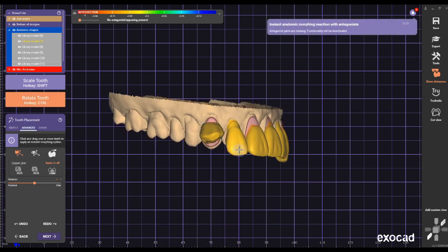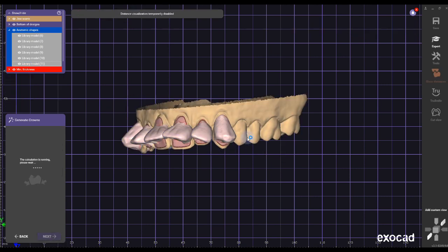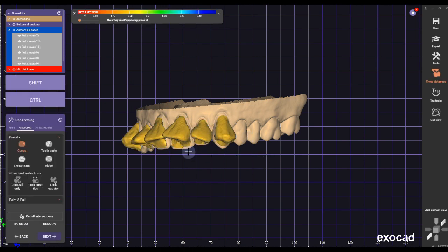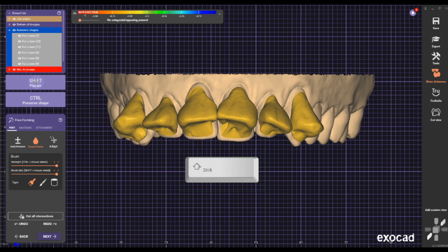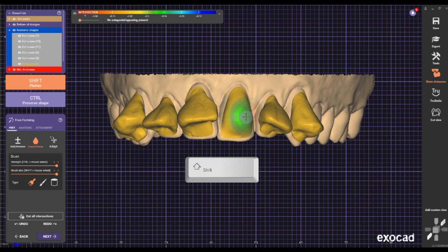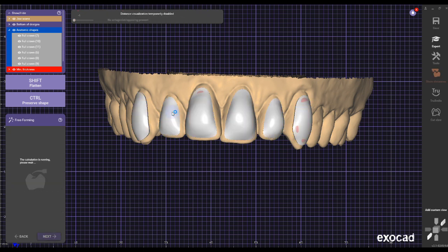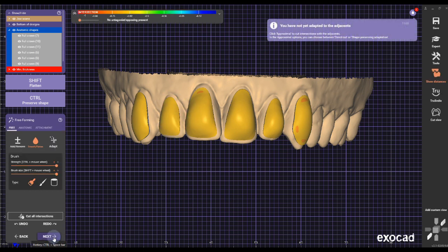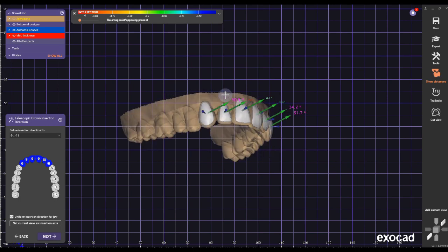Put the teeth in order so they're all upwards, connect them to the margin, and don't spend too much time here. Smooth them out by pressing Shift, making the brush size really large and strong, and just keep smoothing while holding Shift until it's almost flat. Don't worry about minimum thickness or gaps — just make it flat. Then click Next.